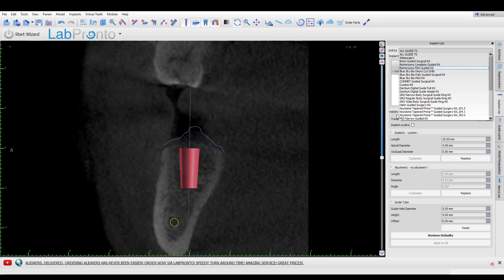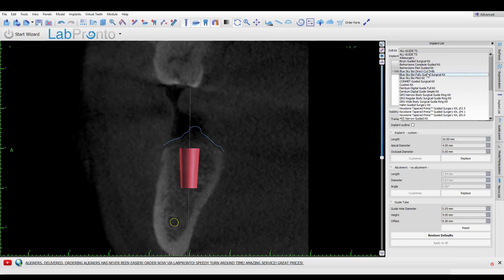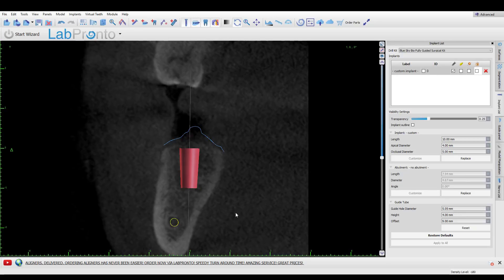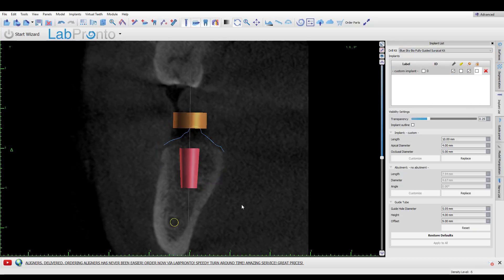I helped in designing the Blue Sky Bio fully guided keyless kit, and I think it's pretty good and about as easy as it gets. I could select a Blue Sky Bio Max, trick the software into thinking it's a Bio Max implant of a similar size, and have everything auto-default. But let's say you're a lab and your customer really wants to use their particular kit. There are a few things you'll need to figure out on the front end — one is: what type of kit is it? Is it a keyless kit, or does it use keys and spoons that the drills go into?